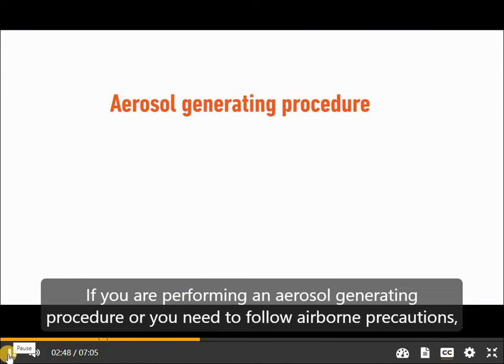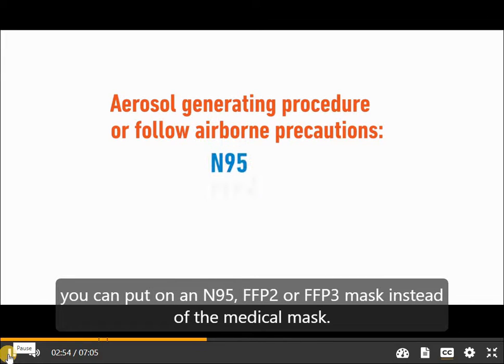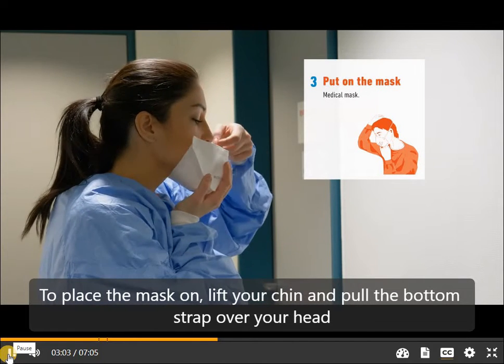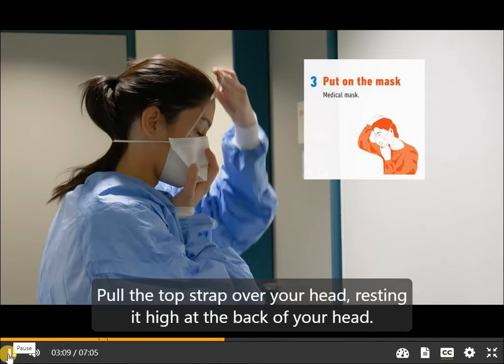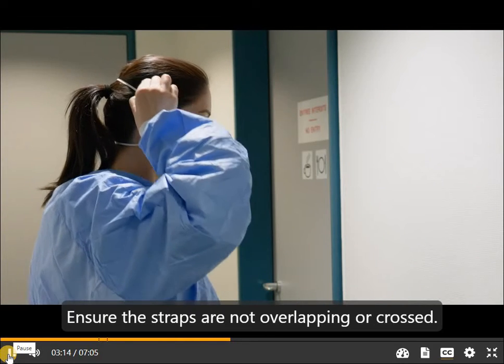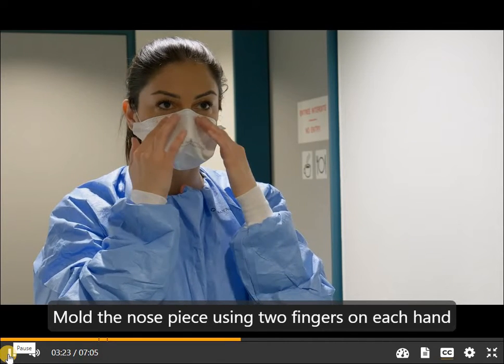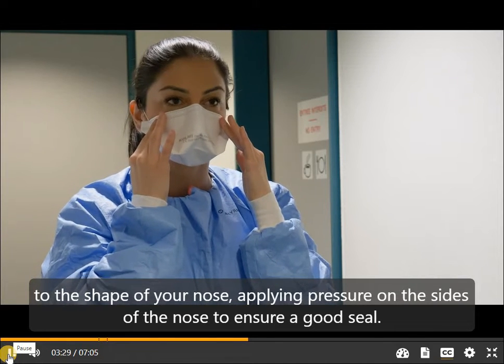If you are performing an aerosol generating procedure or need to follow airborne precautions, you can put on an N95, FFP2, or FFP3 mask instead of a medical mask. To place the mask on, lift your chin and pull the bottom strap over your head, positioning it around the back of your neck below the ears. Pull the top strap over your head, resting it high at the back. Ensure the straps are not overlapping or crossed. Place fingertips of both hands at the top of the metal nose piece and mould it using two fingers on each hand to the shape of your nose, applying pressure on the sides to ensure a good seal.